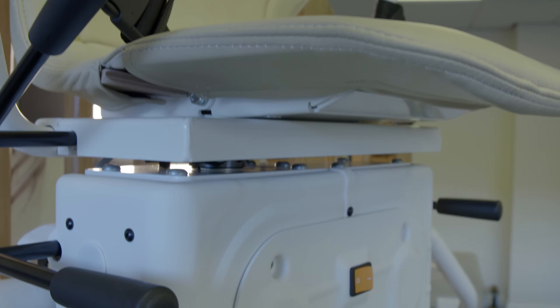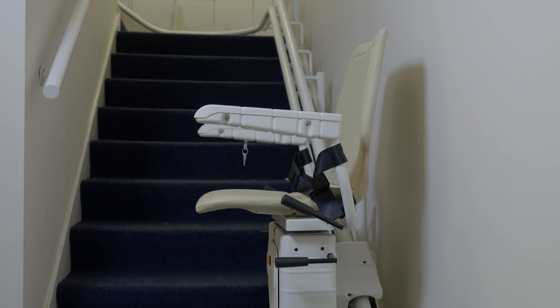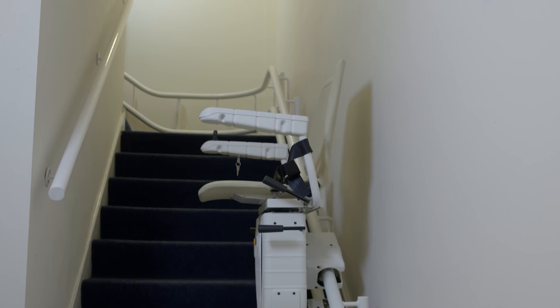When all of these have been covered, move on to the safety features of the stairlift, going over these points twice if you feel it is necessary. Once the user is familiar with the stairlift features, ask them to operate the stairlift to the top of the stairs.